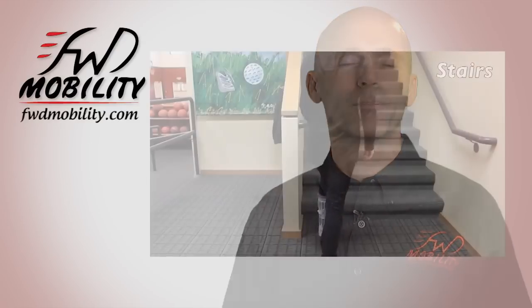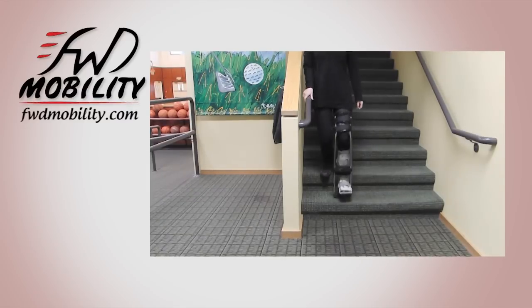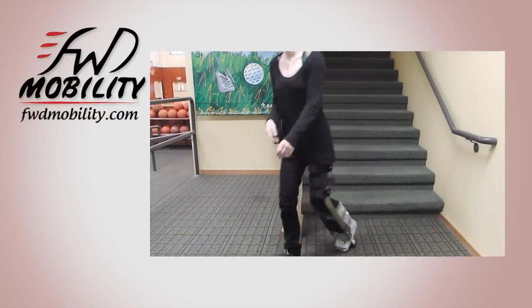You can safely walk up and down stairs. It's so wonderful to be able to actually hang on to a handrail as you're going up and down stairs, as opposed to crutches where you really just have to pray that you can get through the journey.